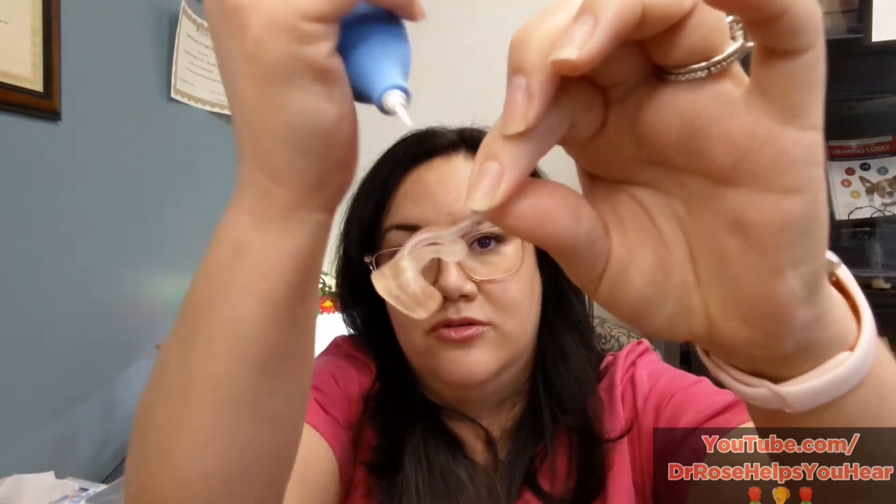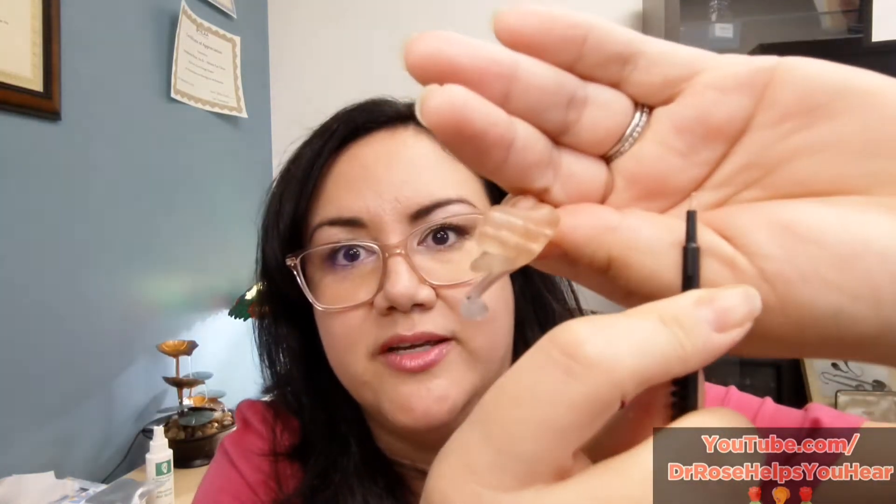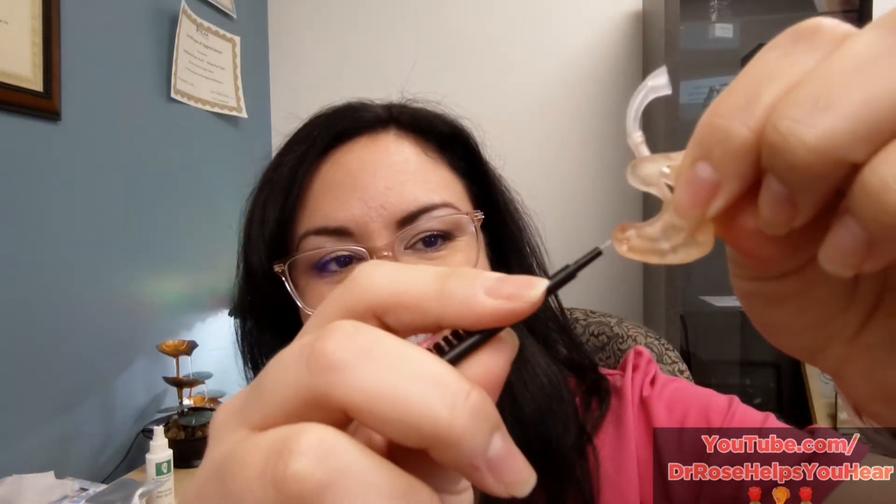You can also squeeze the air continuously — these tube blowers are made for that. You can feel the air coming out the other end. Also make sure the sound channel is clear where the tube meets the top tunnel of the hearing aid. You can do that with a loop tool — just reach in and get any debris at the tip. Be very gentle, because acrylic can chip if you use something hard against it. Get that wax out and hopefully it will fix itself.